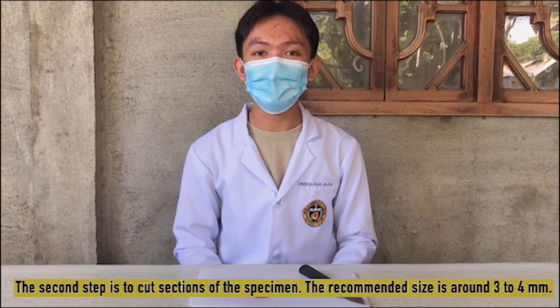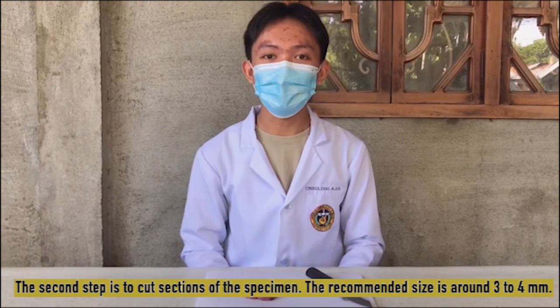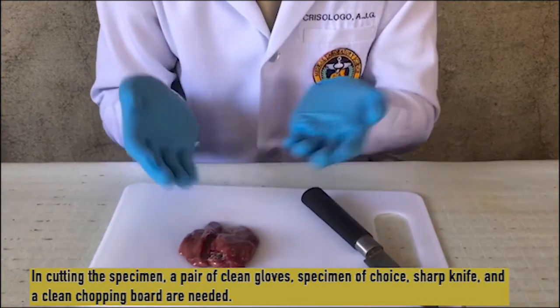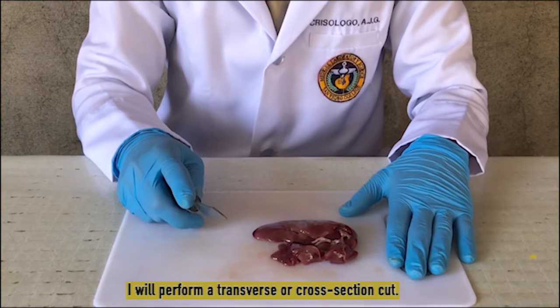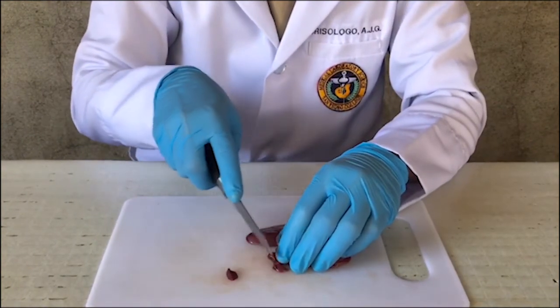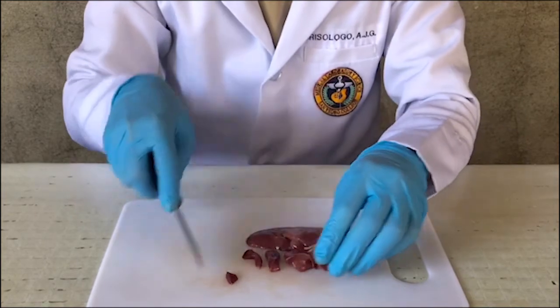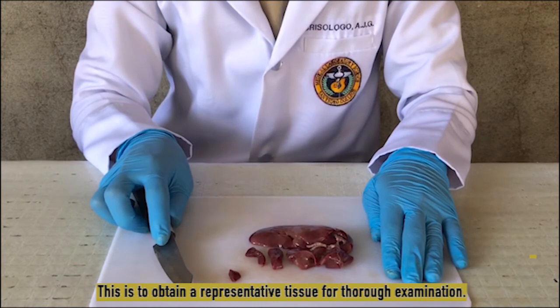The second step is to cut sections of the specimen. The recommended size is around 3 to 4 millimeters. In cutting the specimen, a pair of clean gloves, a sharp knife, the specimen of choice, and a clean chopping board are needed. I will perform a transverse or cross-section cut. This is to obtain a representative tissue for thorough examination.